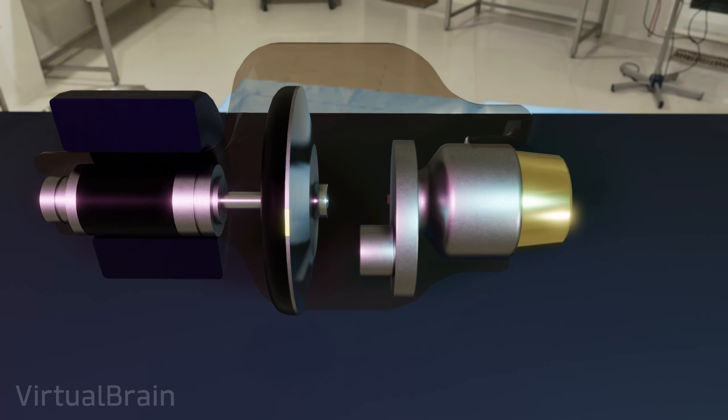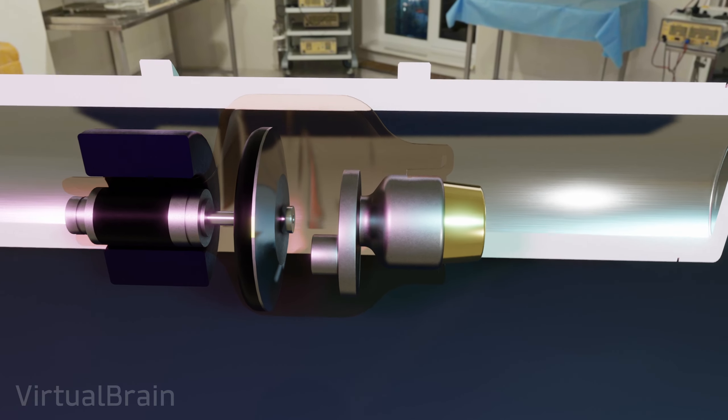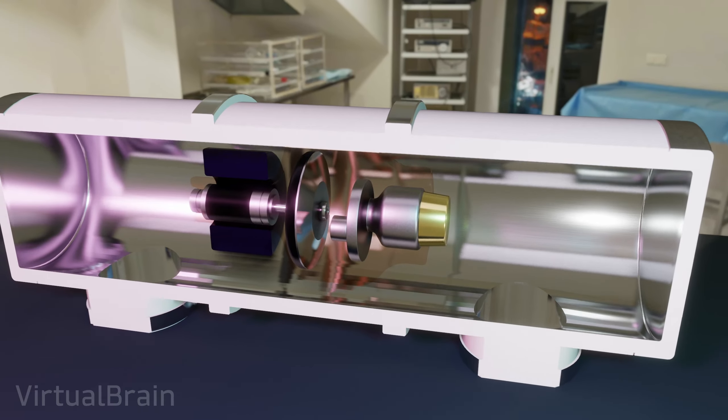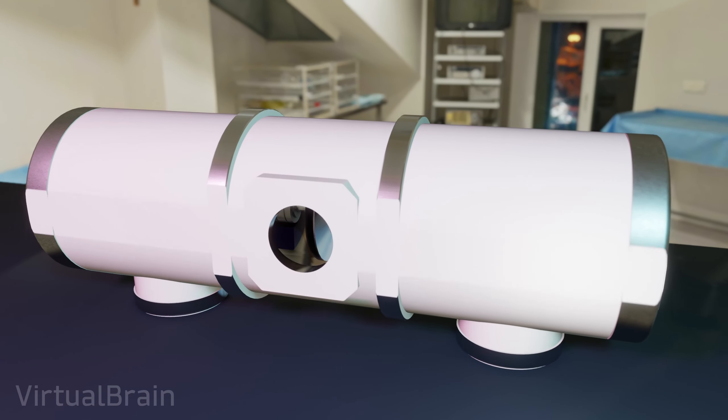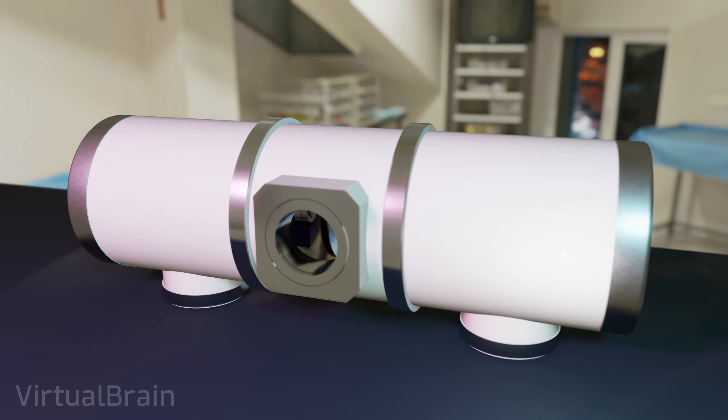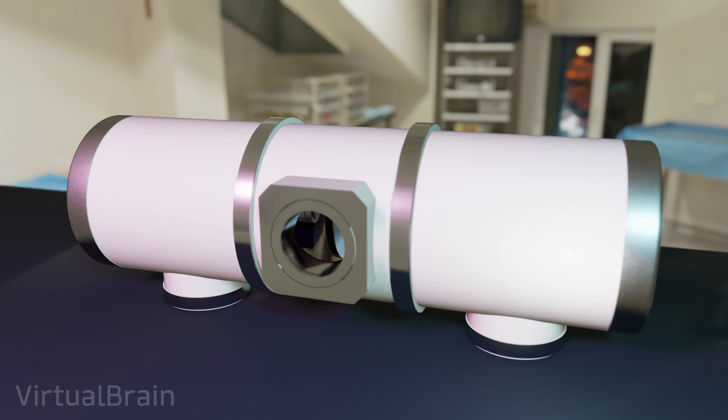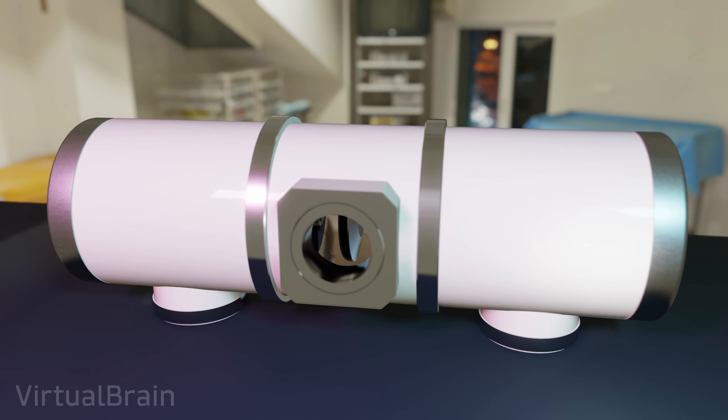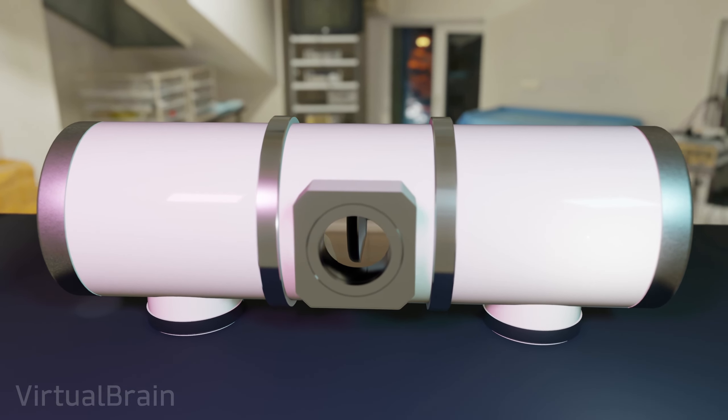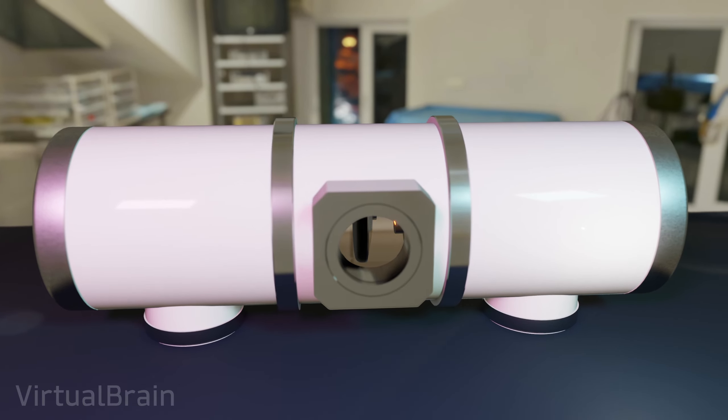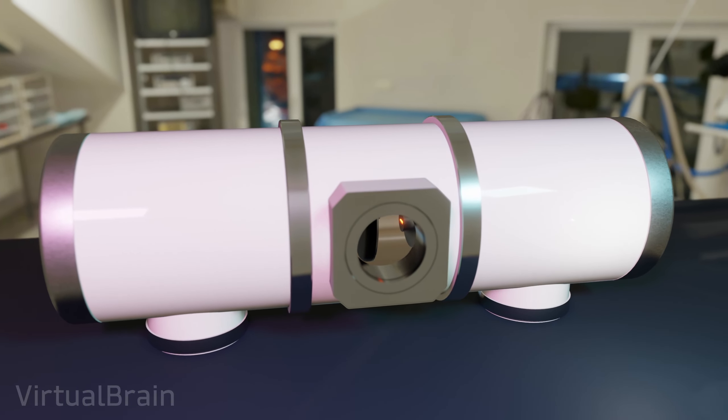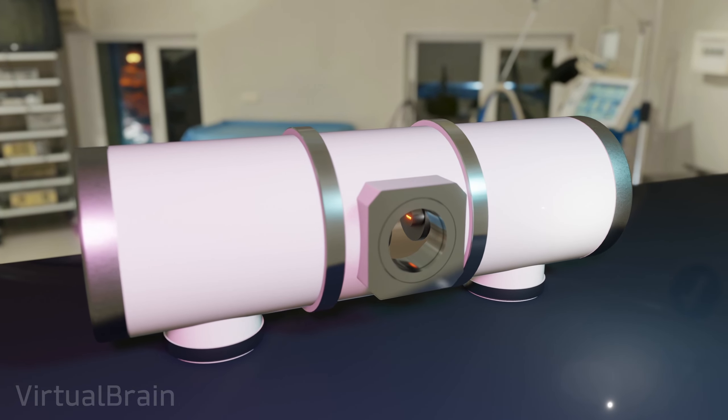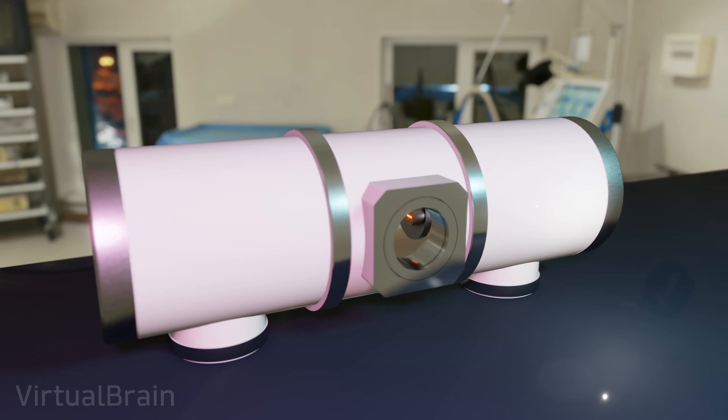Furthermore, to make sure that the X-rays don't reach unwanted places, the tubes usually have a coating of some material such as lead which due to its high density and atomic number is ideal for stopping the X-rays. This cover is usually filled with oils, which help with heat dissipation, works as an electrical insulator and also absorbs a small part of the X-rays. Depending on the application in which the X-ray tube is used, several of these details may change, but with this you will have a solid basis for understanding how this device works.